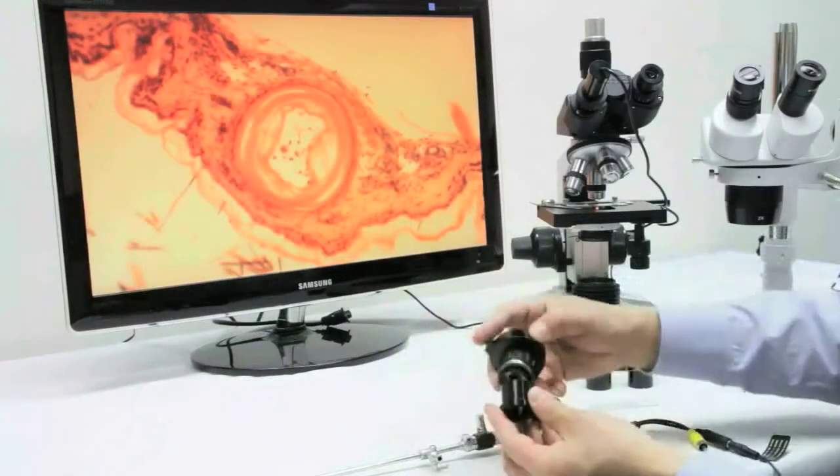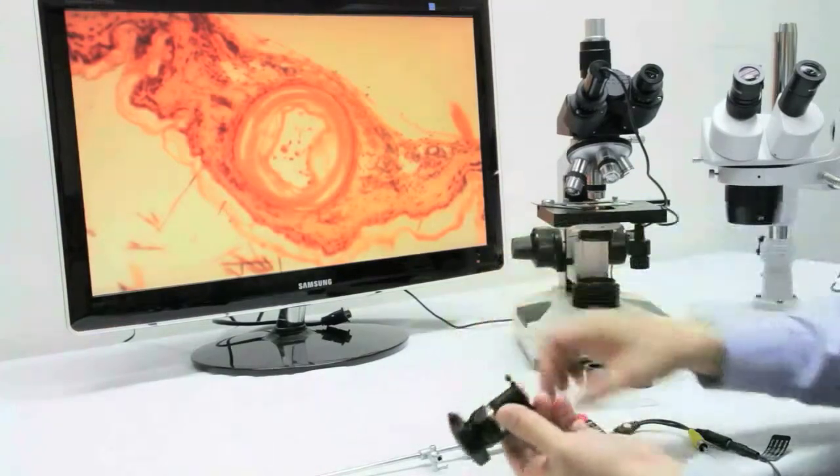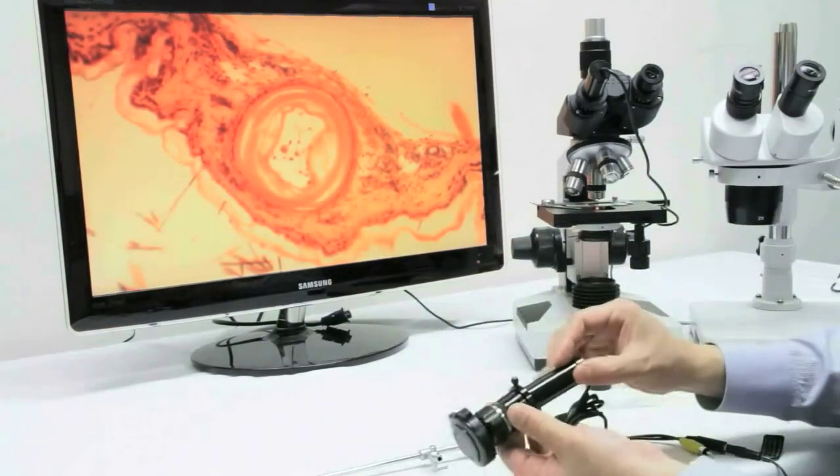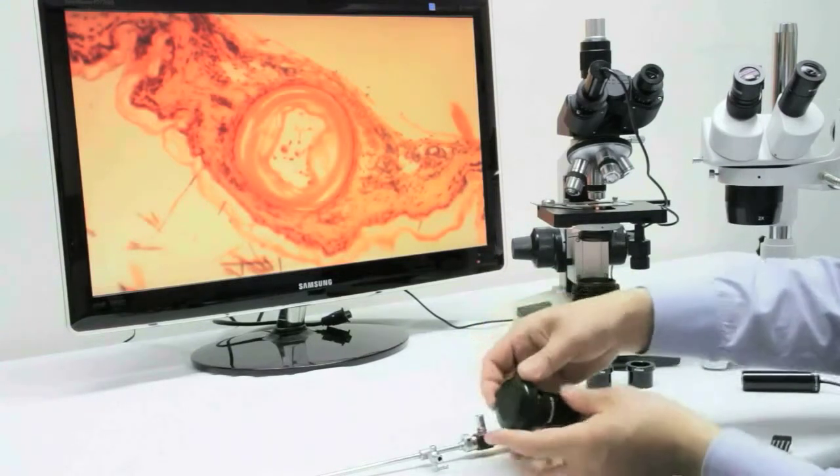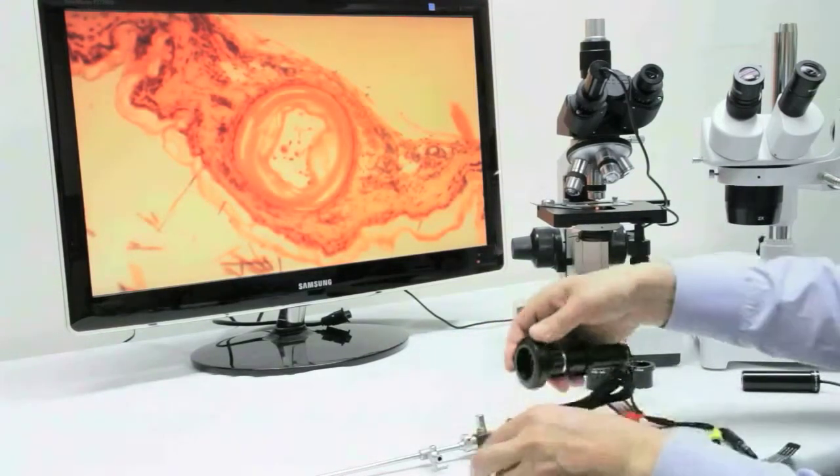Then to C-mount adapter. Next, insert the AM422XN and twist the screw to lock. Release the cover and place the rigid scope where the cover was removed.